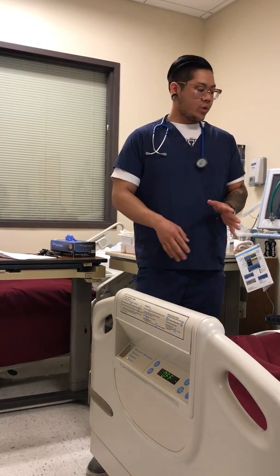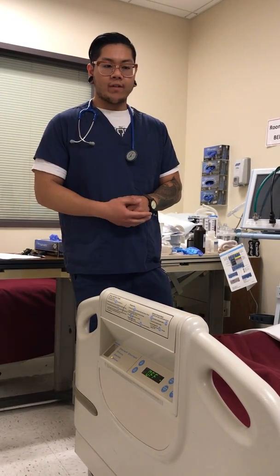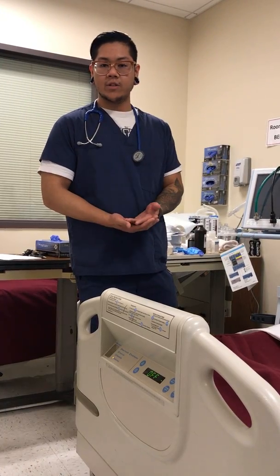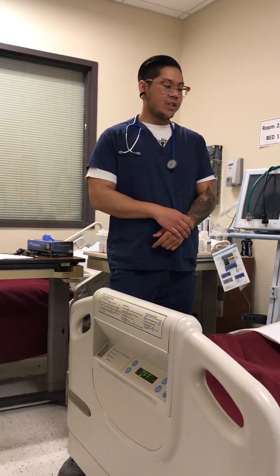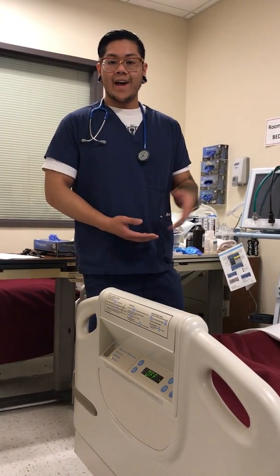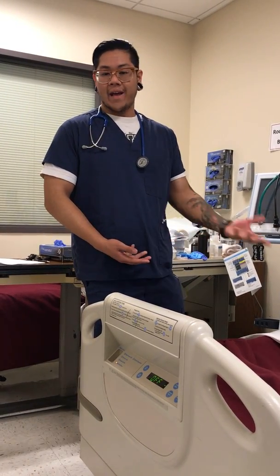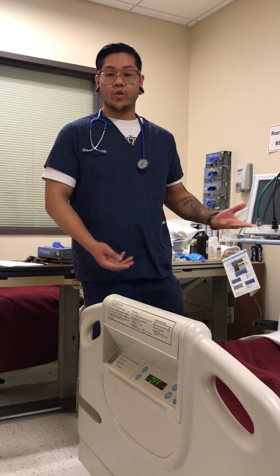Now, before I go in, you want to review the patient's chart and the physician's order. The physician might have something about settings, but since I'm doing this right now, there are not going to be any settings, so I'm just going to do the standard settings. And then you're going to look if the patient has been on a BiPAP before, or if they have a mask already, and basically you got to size the mask. So you're going to look for that, and then you're going to gather your necessary equipment.